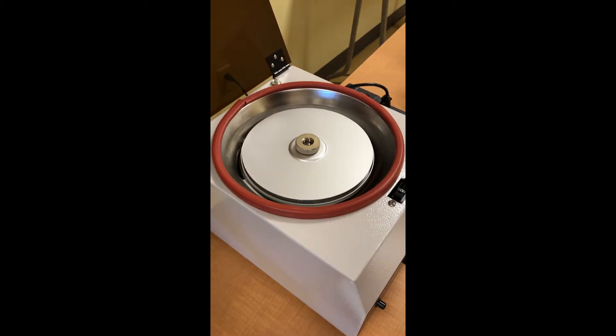And then just look at the percent. And again, that's what hematocrit is. Don't forget, hematocrit is never just a number - it's always a percent that the red blood cells make of total blood volume.